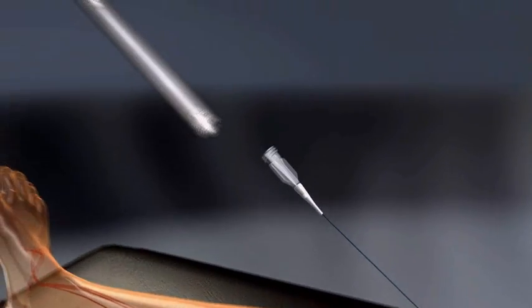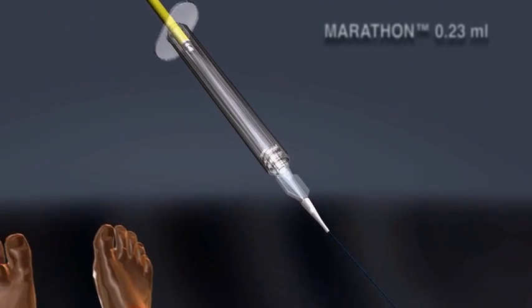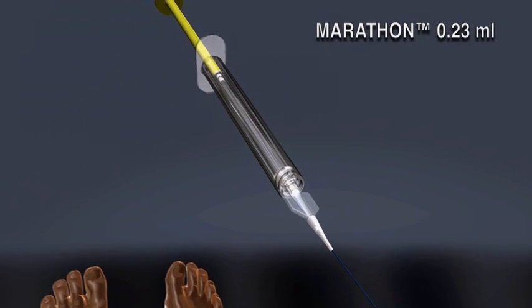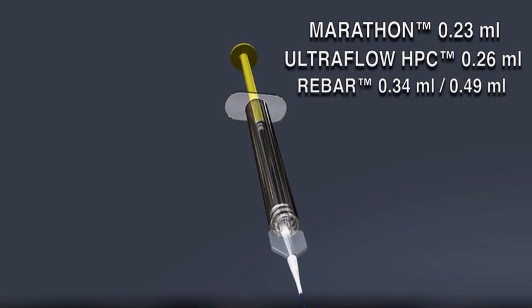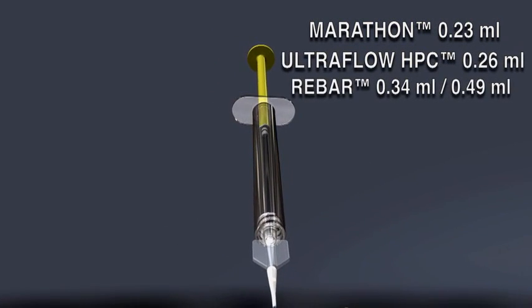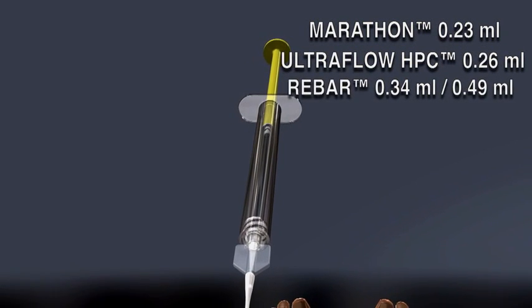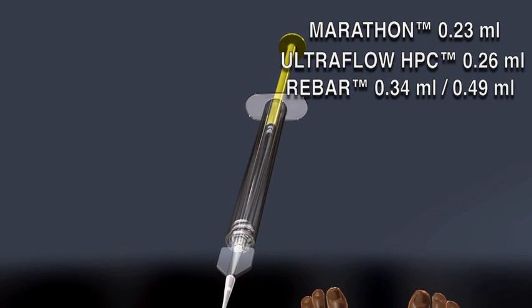Connect the yellow DMSO syringe to the delivery catheter and inject the DMSO in sufficient volume to fill the catheter dead space. The catheter dead space is called out on the catheter package and in the case of the Marathon flow directed catheter, the dead space is 0.23 mL.